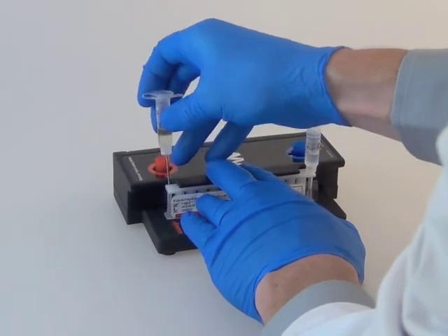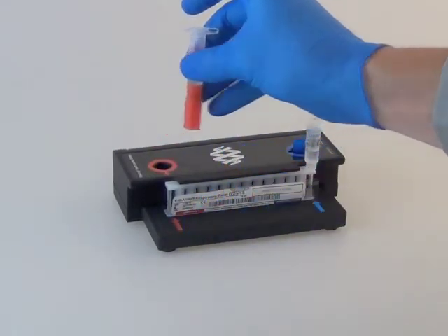Replace the sample injection vial into the cap, and dispose of the sample injection vial.